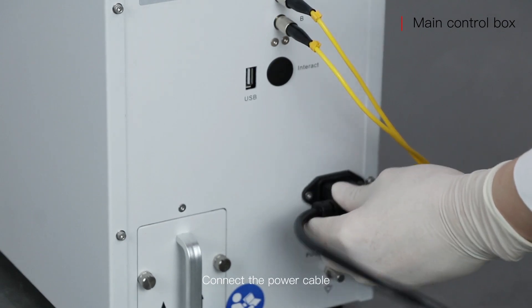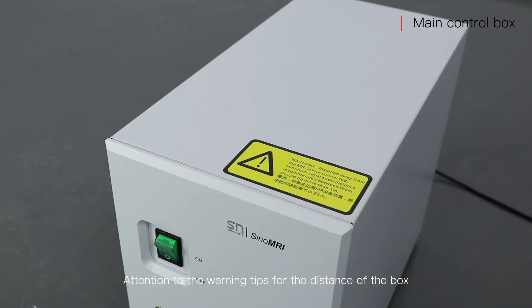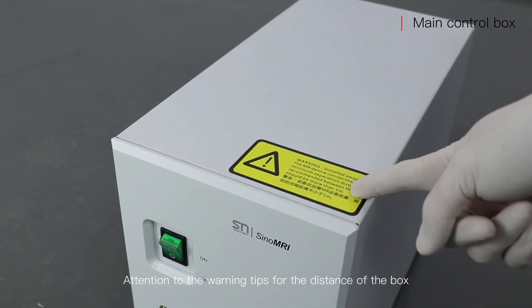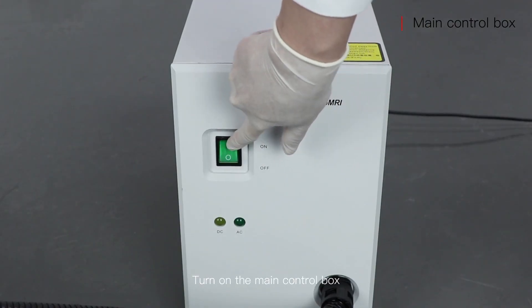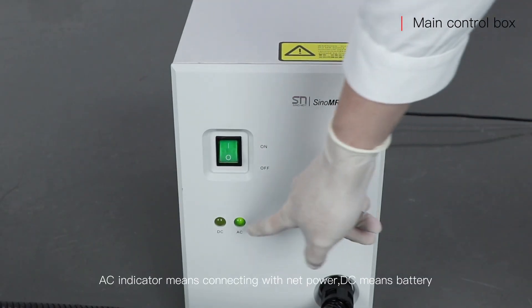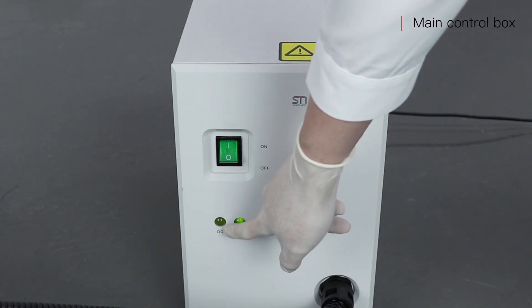Connect the power cable. Pay attention to the warning tips for the distance of the box. Turn on the main control box. AC indicator means connecting with the mains power; DC means battery.